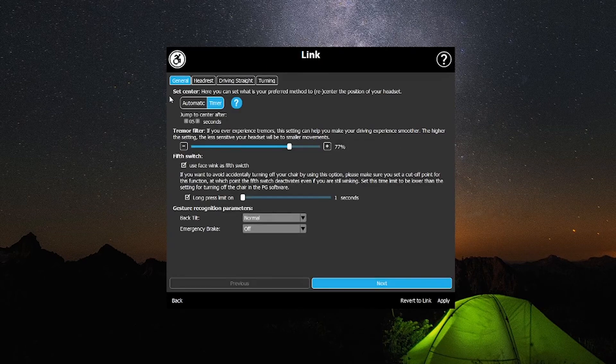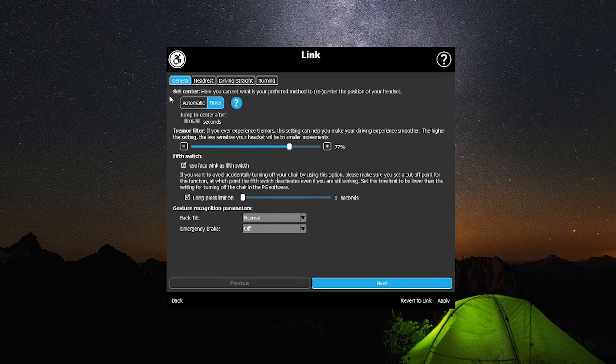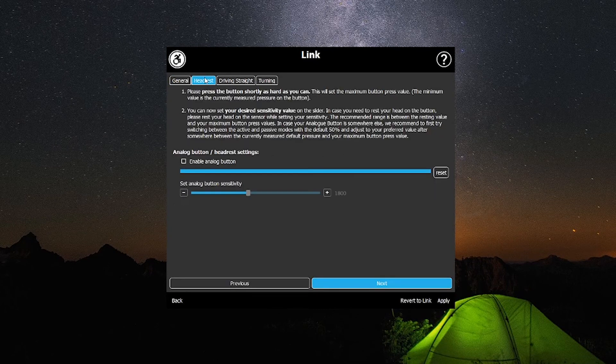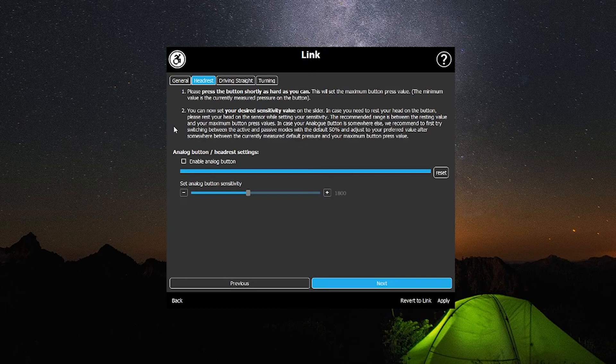Please note upon the first install you'll have to go through all the settings in order but later you can go and access each setting independently.